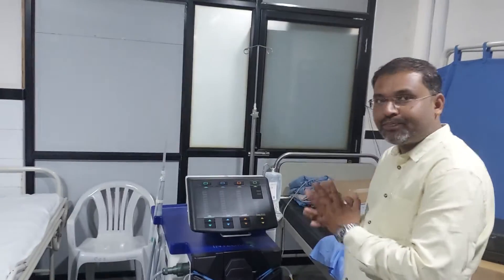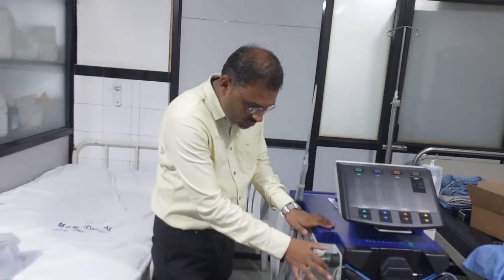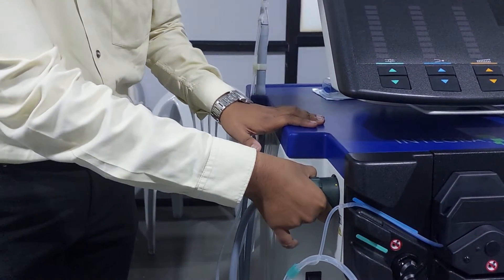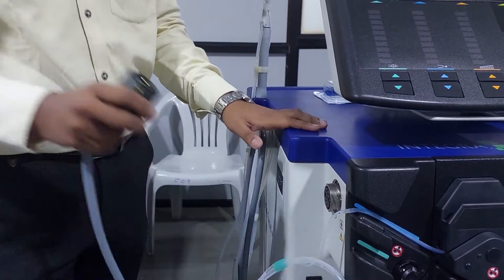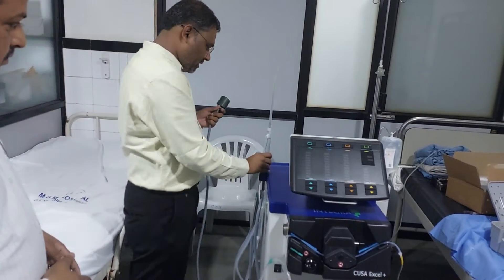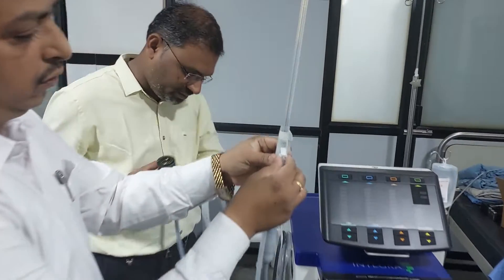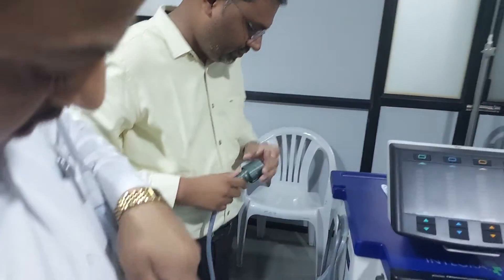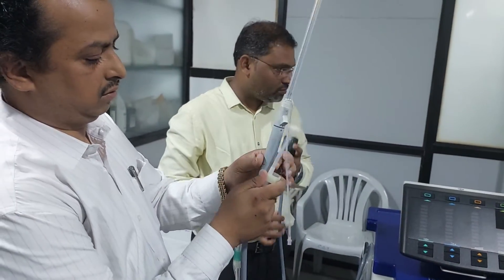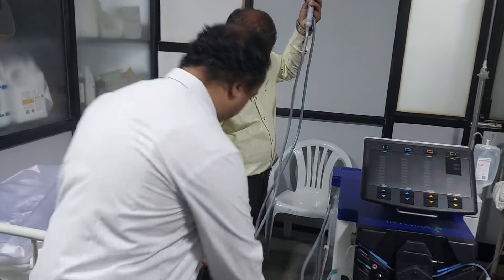Now we can switch off. To remove the handpiece: push it in the anti-clockwise direction and then remove it out. After that, remove the nose cone connection, then the irrigation tube, and remove it out.